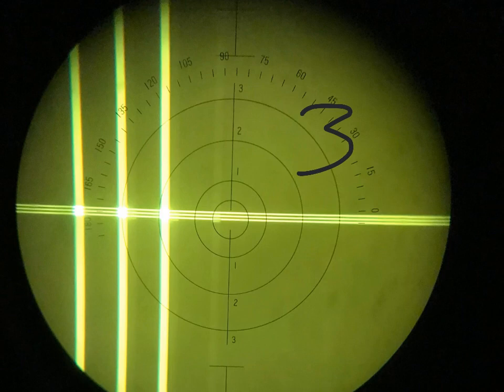It shifts from here all the way to here. So you have three, and it shifts this way to your left. So that's base out.